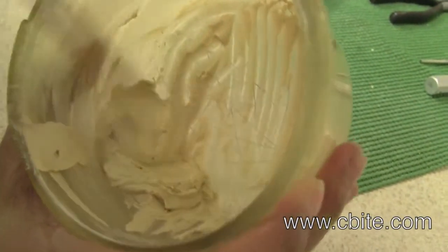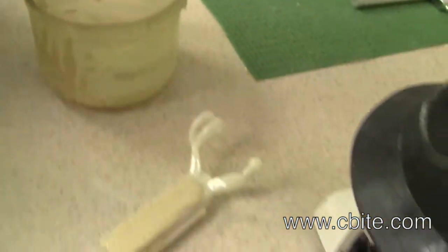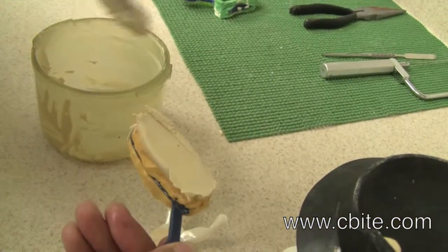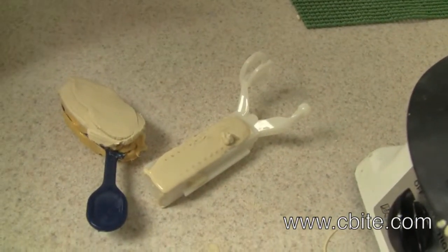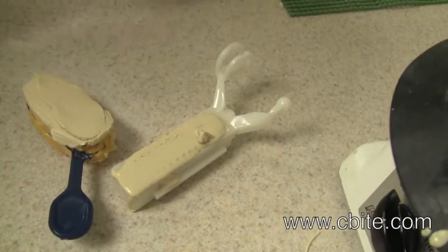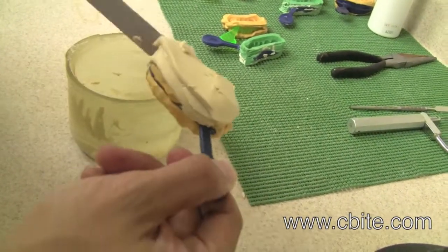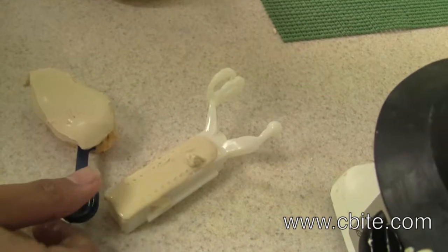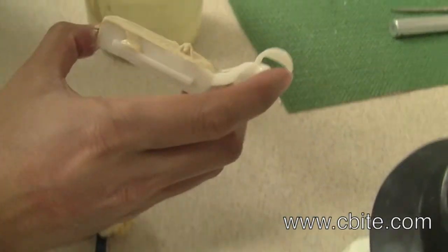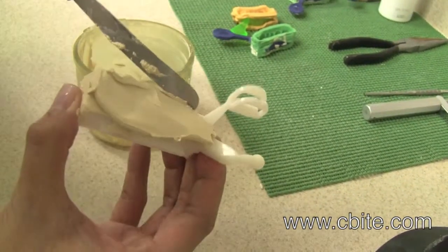We have to make sure that the remaining stone is firm enough. It has to have already some firmness, otherwise the stone will not stack properly — it will just fall around on the edges and you won't be able to properly mount the impression on the articulator. It is critical that your stone has the right type of firmness at this point.